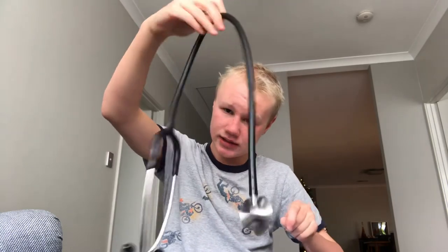So the first part is... this is the part where you put your ears. As you can see, it's pointed towards my nose — that's so you can hear more range of sound. And the tubing. And then this part — this is the diaphragm part where you listen to the heart sounds, like usual sounds. And then here just to listen to your pulse or anything like that.